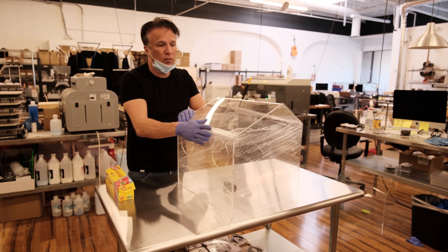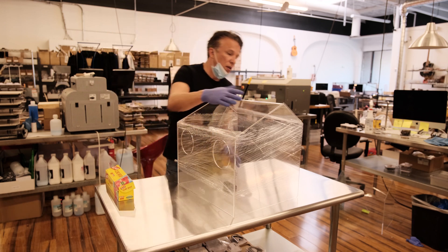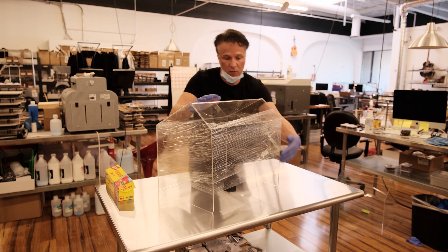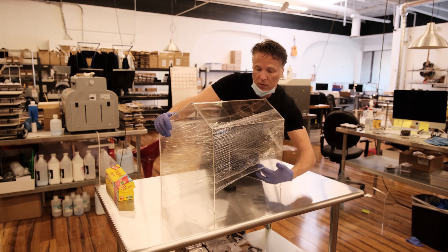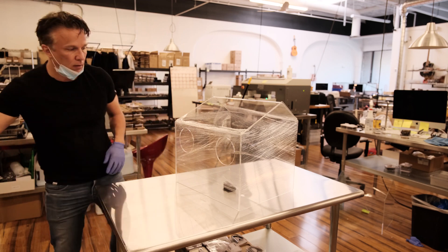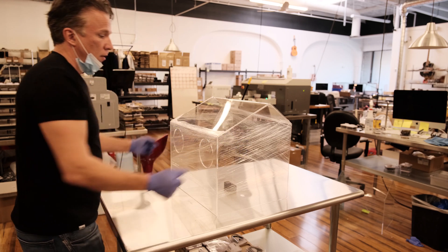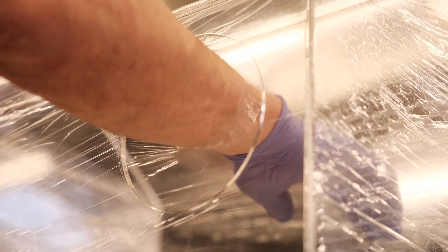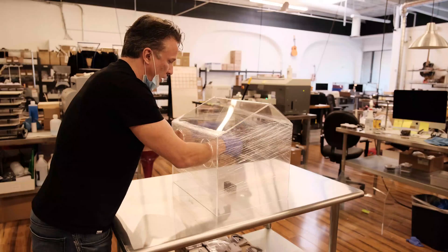Now with the cling wrap in place, we've created seals over top of the arm holes and we've also created a seal back here where the patient will go. When you place this over top of the patient, you're going to create a seal around their body right here. Once you place it onto the patient, you can just push your hands right through and create a small area there to do your intubation.